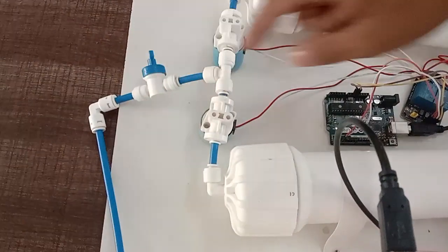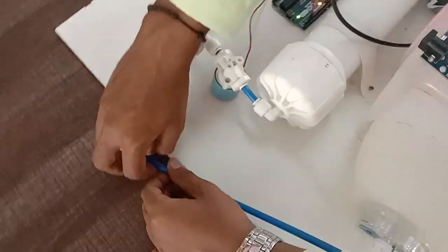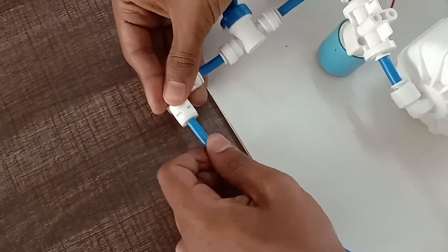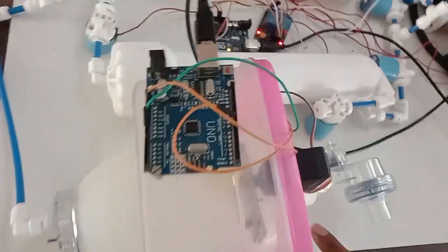this switching will be taking place every 11 seconds. And after that, here we are having the air outlet valve. Here we will be getting the pure oxygen from here, and this will be connected to our Ambu bag which is the ventilator.